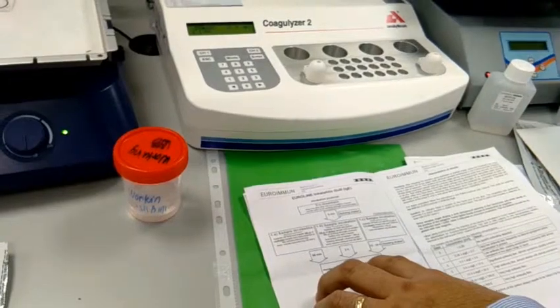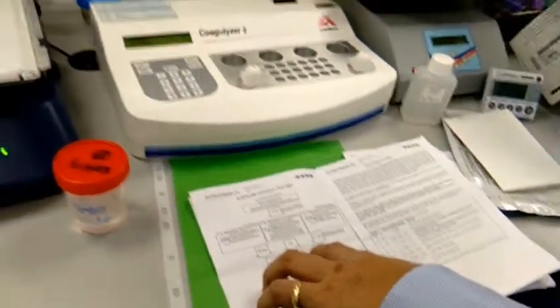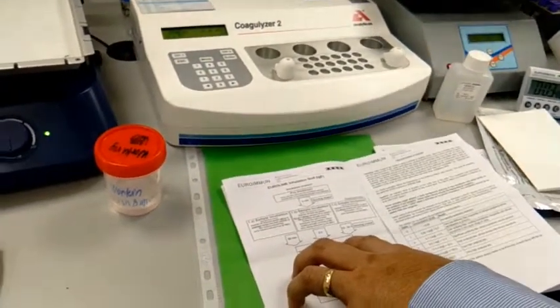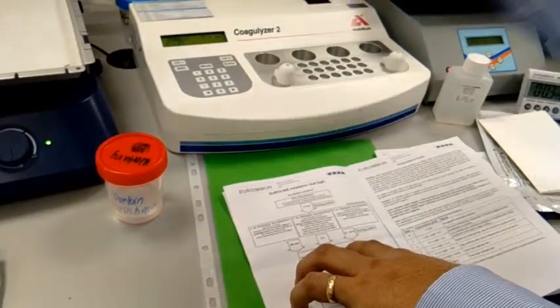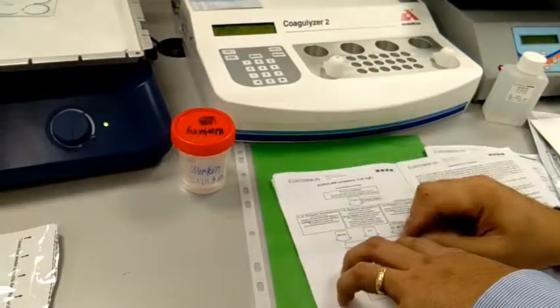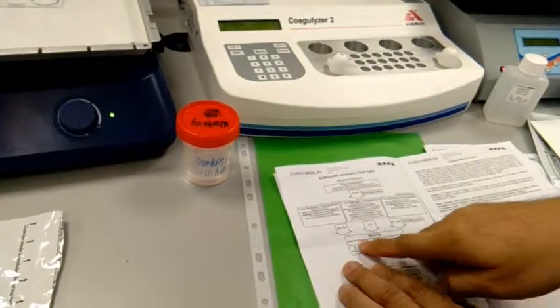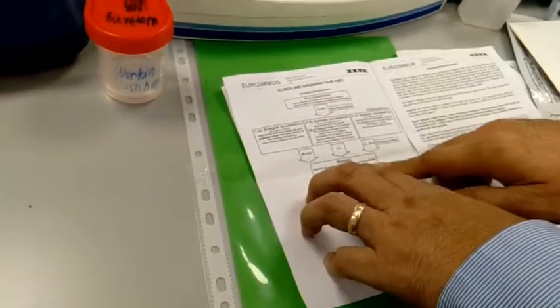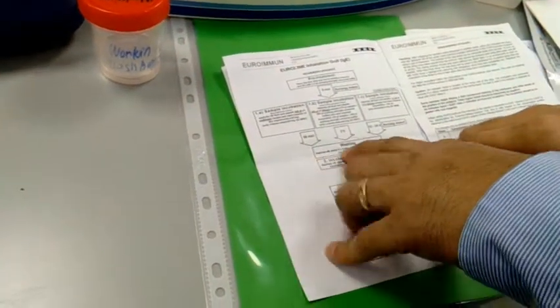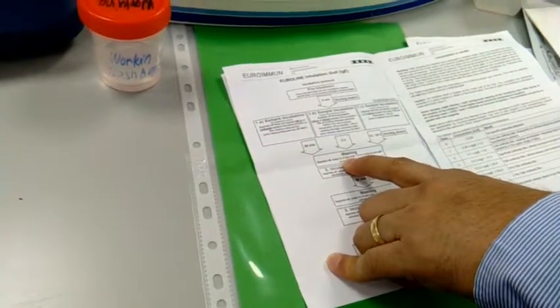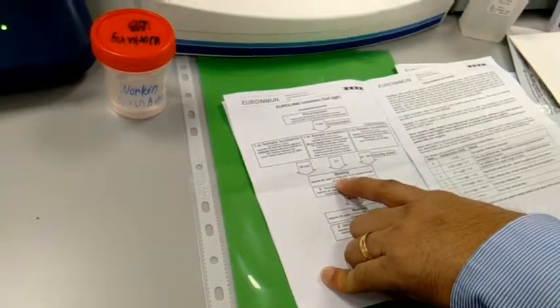Incubate. No, on the shaker. Always on the rocking shaker. And then for 5 minutes, take again the working solution, pipette it again, 1ml. Because it says aspirate and wash for 3 times for 5 minutes. So you have to consume 15 minutes for washing.